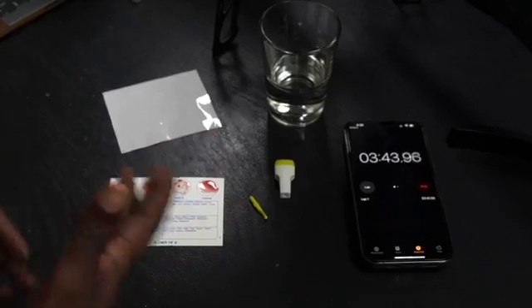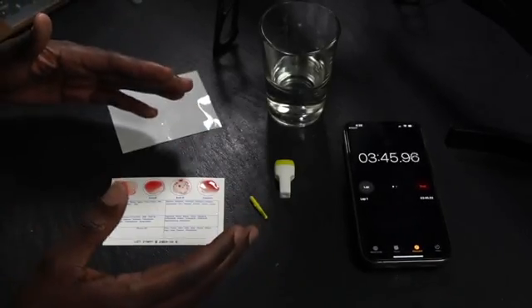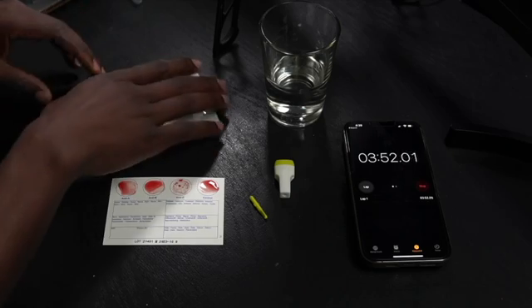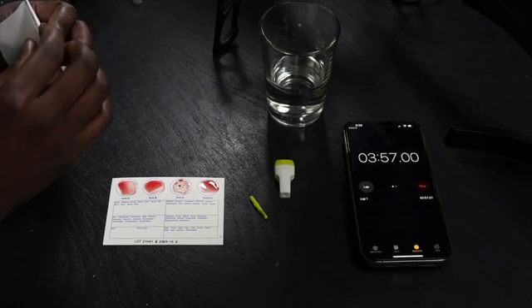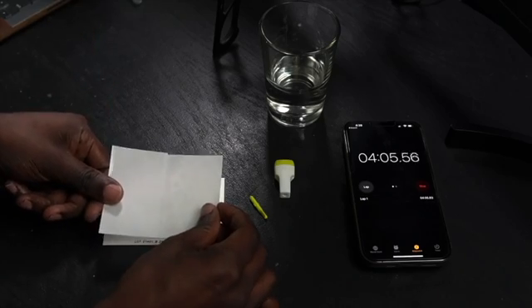What you can do now is just put this somewhere so that it can air dry. You want to basically leave it until it's completely dry, and then you have this little piece of sticky plastic you can take off the paper and use that to laminate this just for it to be protected. And you can keep it safe for a long period of time if you need that. So there you have it. As I mentioned, it's a pretty straightforward and simple process and anyone can do it at home.